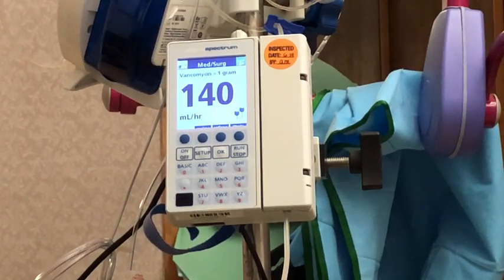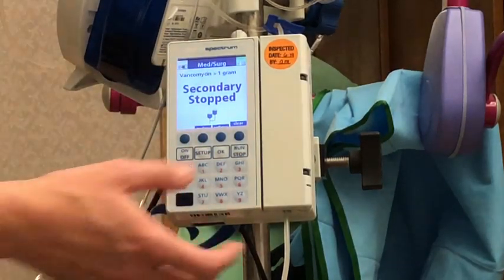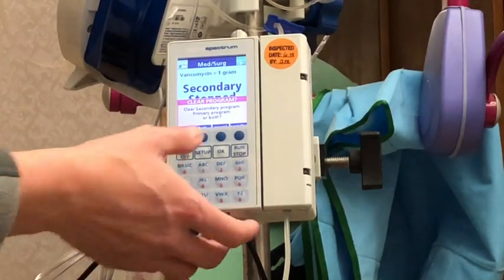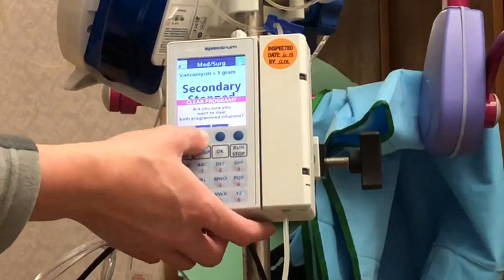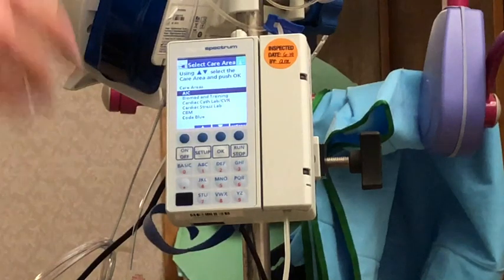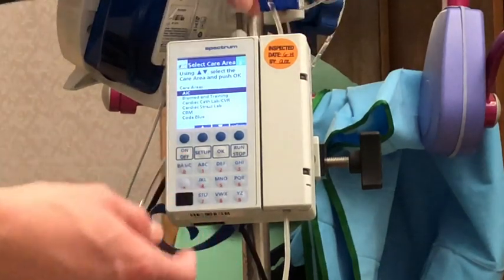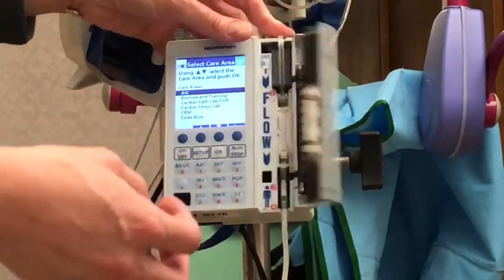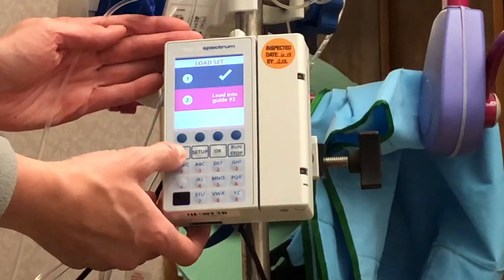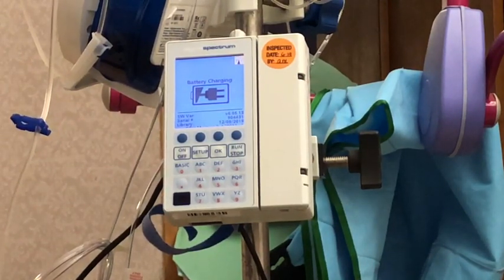The last thing I'll show is how to clear the infusion pump. I'm going to stop that, and to clear the pump — we should be clearing our pump at the end of every shift — I hit 'clear pump.' It's going to ask if I want to clear the secondary, primary, or both. I'll choose both, and confirm yes. Before you clear the pump, be sure to review the settings first so you can note the volume. Then we unload the tubing: open it, remove the tubing, close the door, and power it off. And that's the basic information on how to use our Sigma Spectrum IV pump.